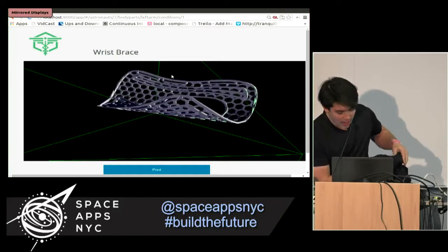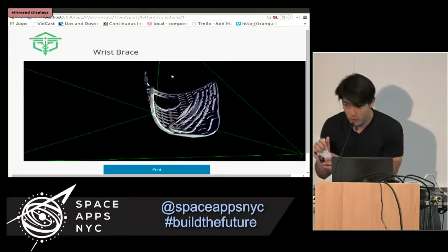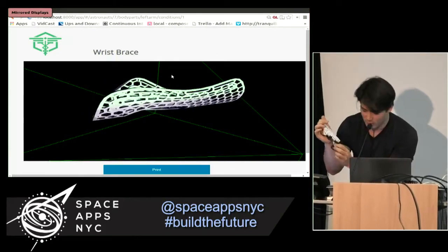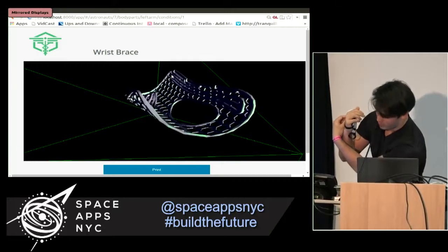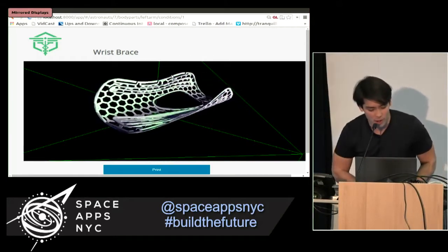You notice that this is something we can build out of standard plastic — it's very light and easy to ship on board a space mission. I'd be lying if I told you it wasn't cool to print one out and try it on myself. Big respect to John for getting these models together. Here we have it rigged up with some Velcro to go around my arm.